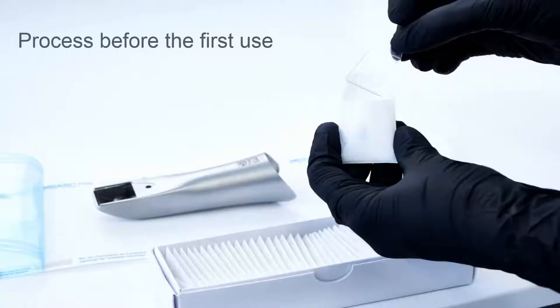The disposable windows come in packages of 50. The autoclavable sleeve is delivered clean but non-sterile. For storage in the practice, as well as in preparation for the first use on a patient, the sleeve should undergo a sterilization process.